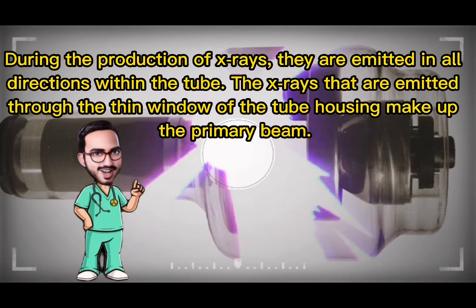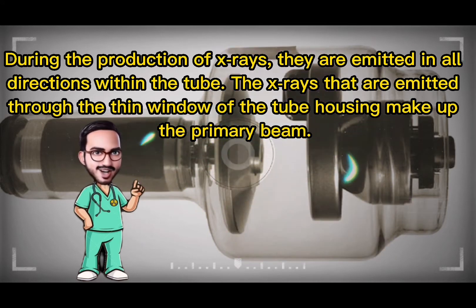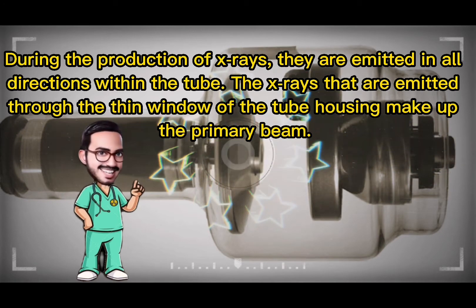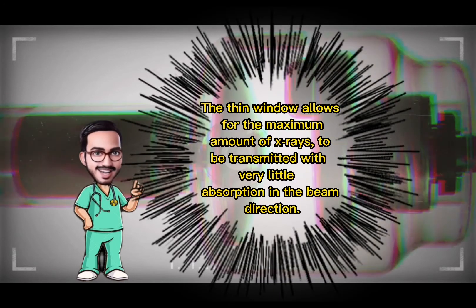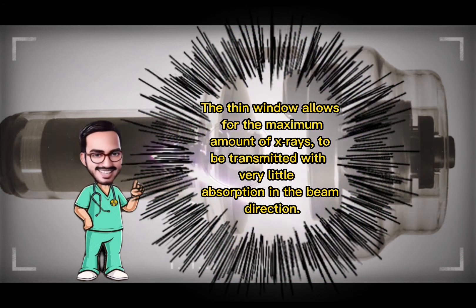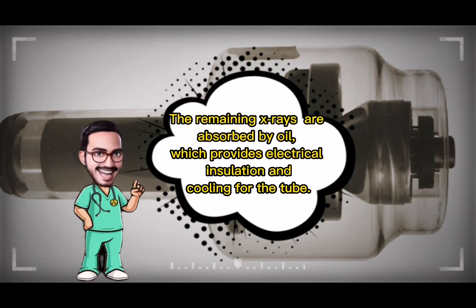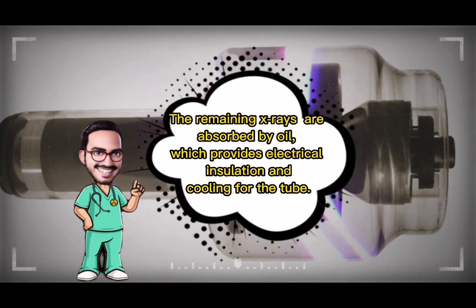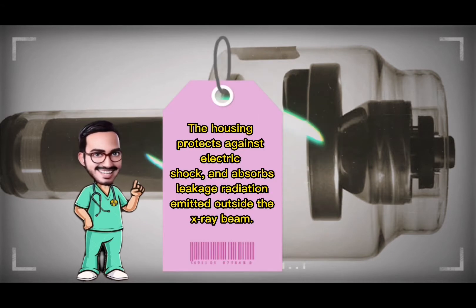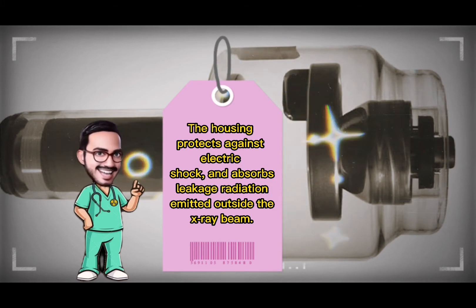During the production of x-rays, they are emitted in all directions within the tube. The x-rays emitted through the thin window of the tube housing make up the primary beam. The thin window allows maximum x-ray transmission with very little absorption. The remaining x-rays are absorbed by oil, which provides electrical insulation and cooling. The housing protects against electric shock and absorbs leakage radiation emitted outside the x-ray beam.